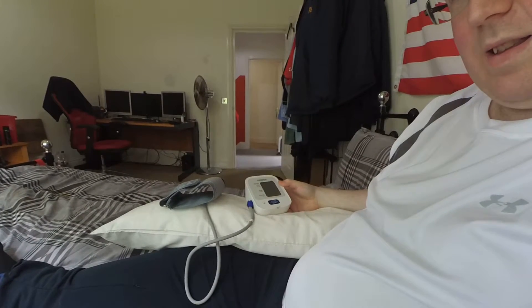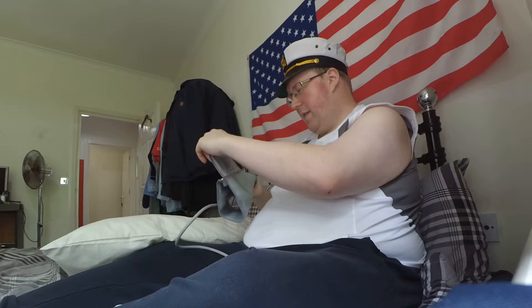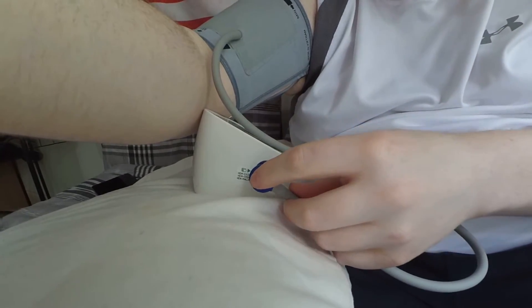Let's have a play with that, shall we? So let's take our Vietnamese product — the armband. There are some instructions on how to attach it to your arm. Let's slide that into the usual location and tighten it just above the elbow. That's a good fit, I think we can be happy with that.